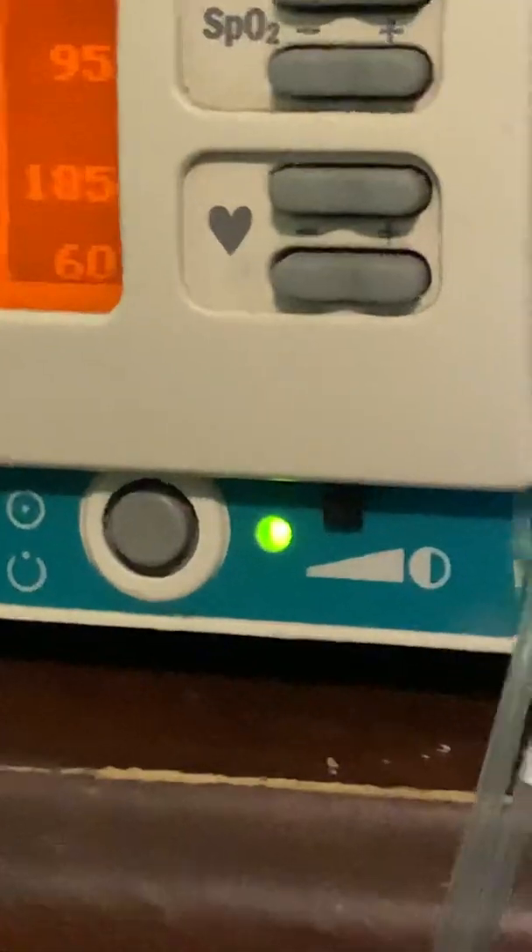We're going to go back to the waveform display. And here we are — and that's a basic overview of the Datex Omeda 3900P Pulse Oximeter.